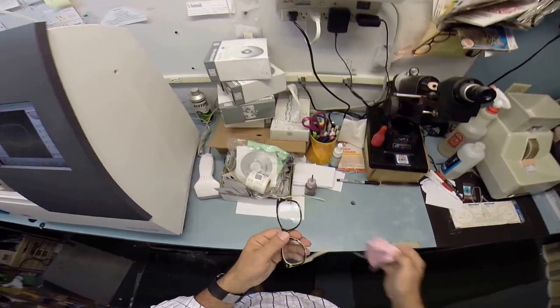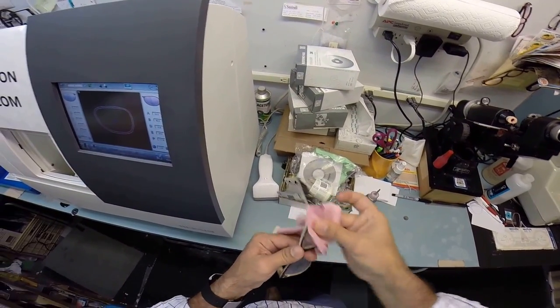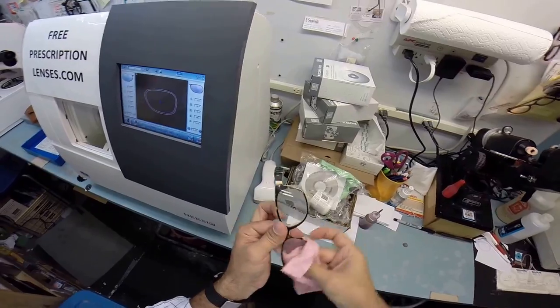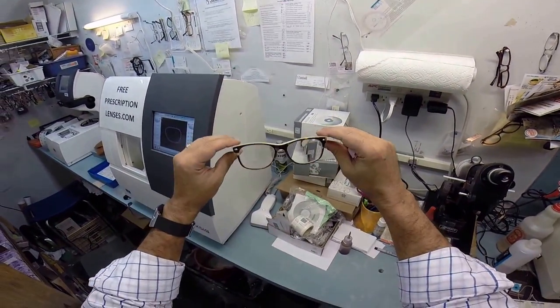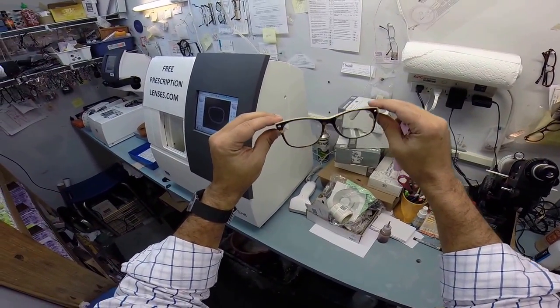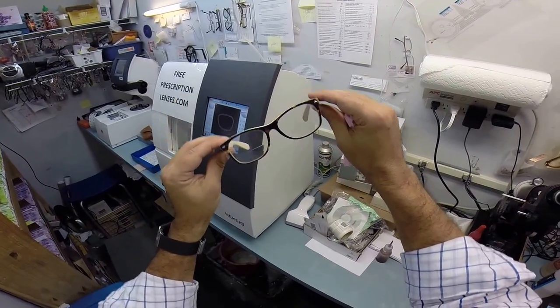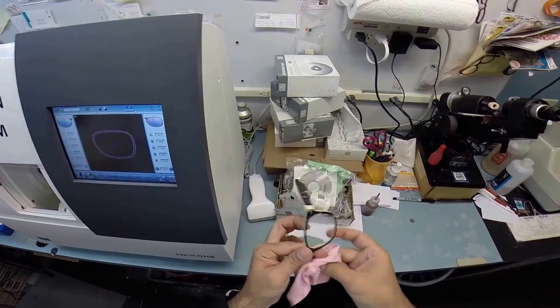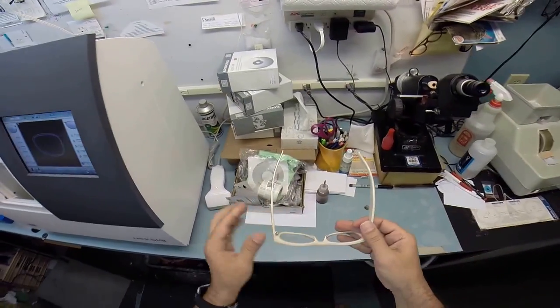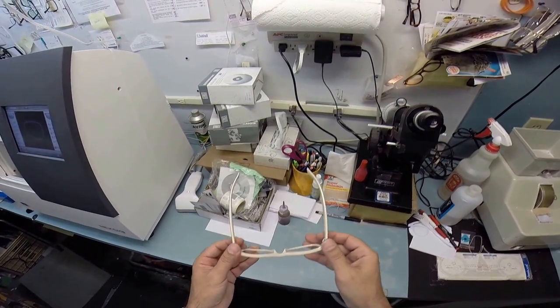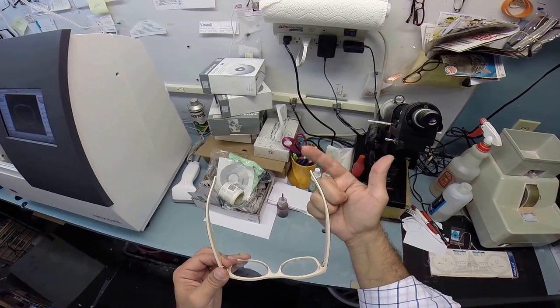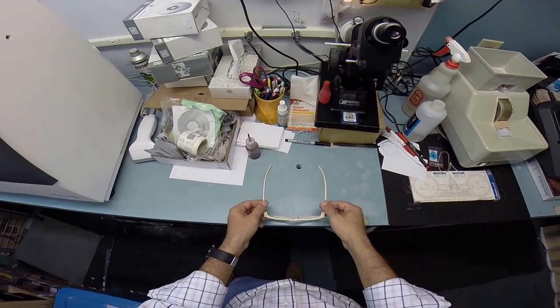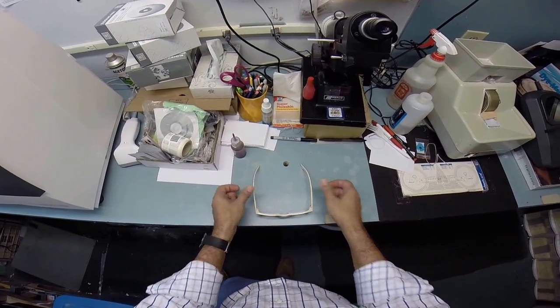Now, one last thing I want to do before I ship to you, other than clean your lenses, is get these in standard alignment. Eighty percent of people have one ear that's higher than the other. So when you get these in the mail or if they're too loose or too tight or more realistically, one side is higher than the other. Just stop by your local optical shop and just tell them if it's high or low or if it's loose. They'll know what to do. It only takes about 30 seconds to adjust the frames, but I'm going to get them in standard alignment first. The standard alignment are also known as three point stance. One, two, and the bottom of the frame being three. I set it on the counter and press down. There is no wobble.